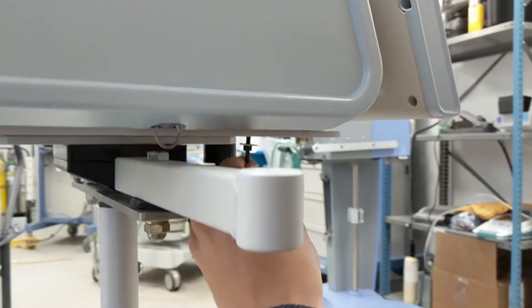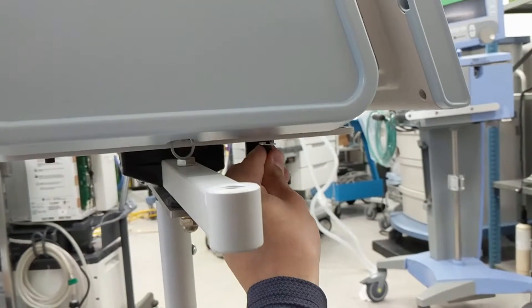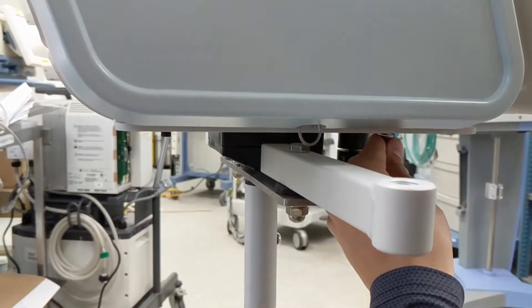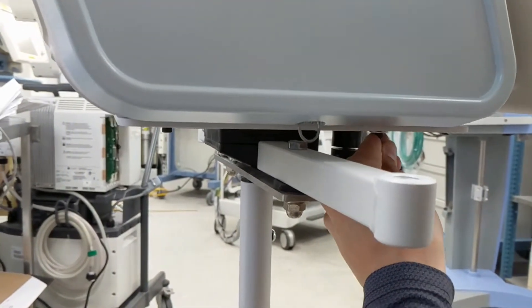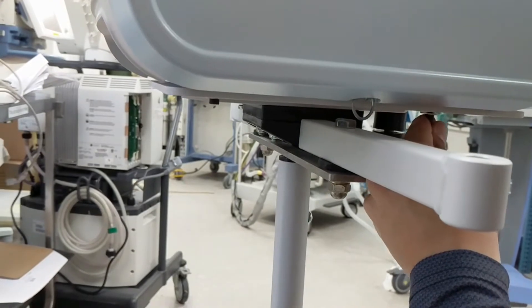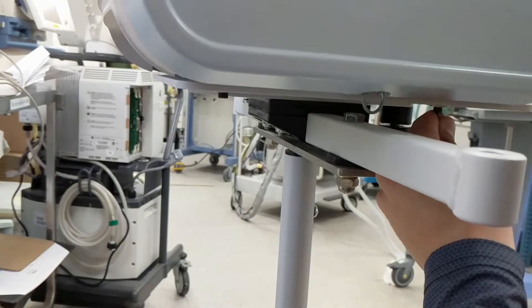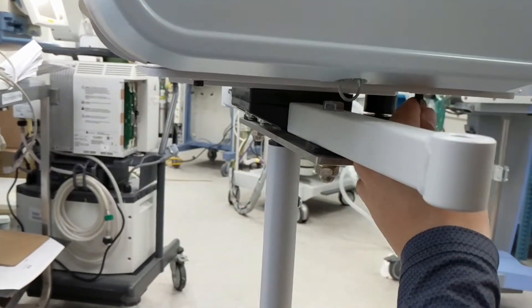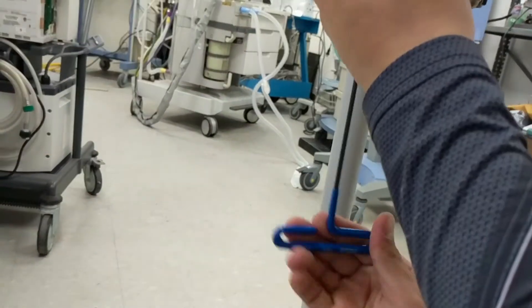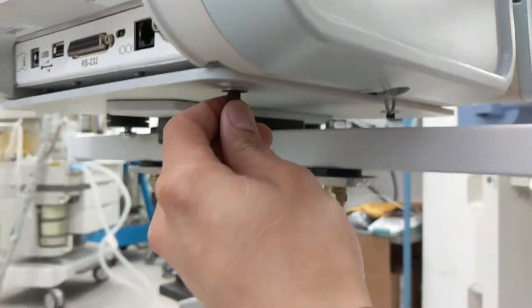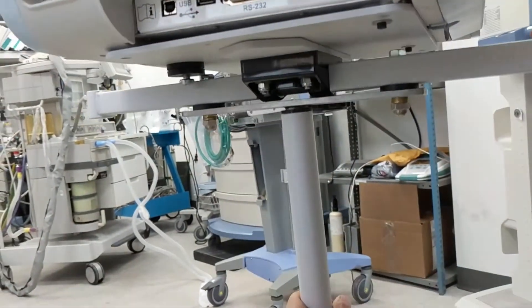And there is this guy. And then at the end, they should all be flush and screwed in all the way. So, the back two screws. You don't want to go super tight, but you want to be snug, and you want to turn this guy back around and finish with the front.